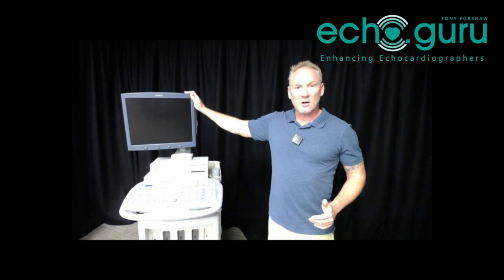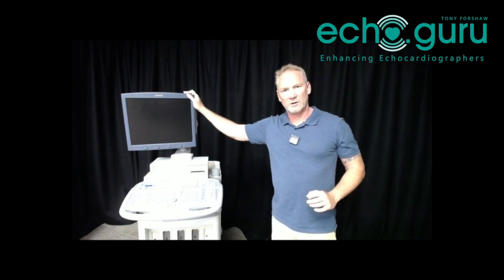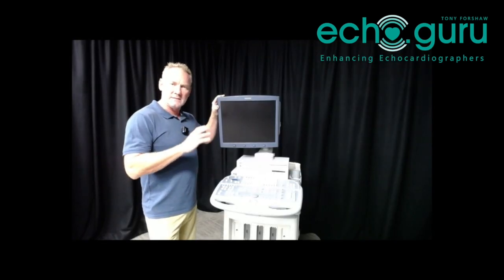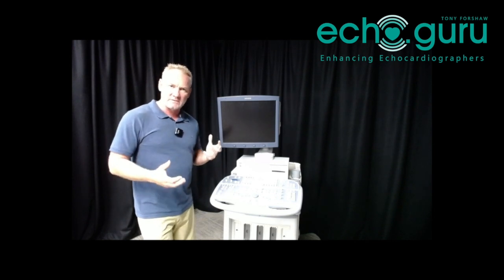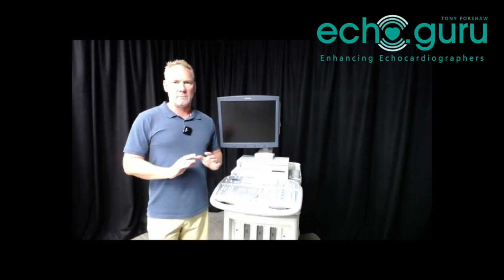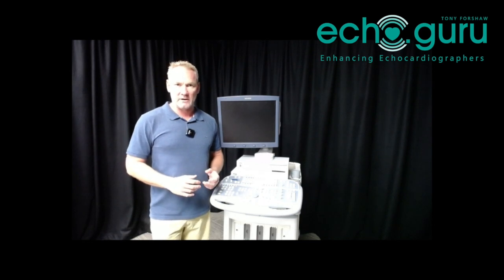As I said, this is an old machine — about 10 or 15 years old. It still takes beautiful pictures and hopefully we'll be able to get it to a stage where we can use it for training. The process we're going to go through today is exactly the same regardless of which machine you're using. The machines might have slightly different locations for the filters and slightly different filter design, but at the end of the day all ultrasound machines are essentially the same kind of package.